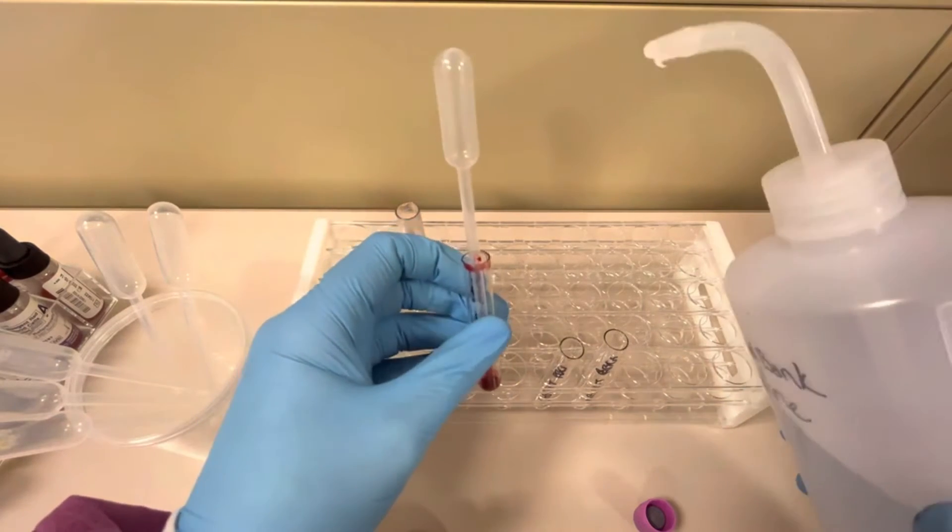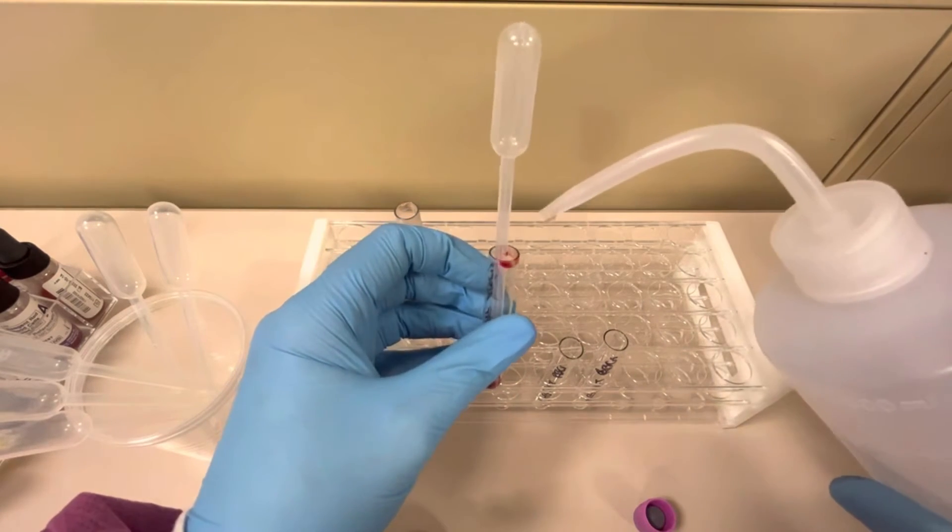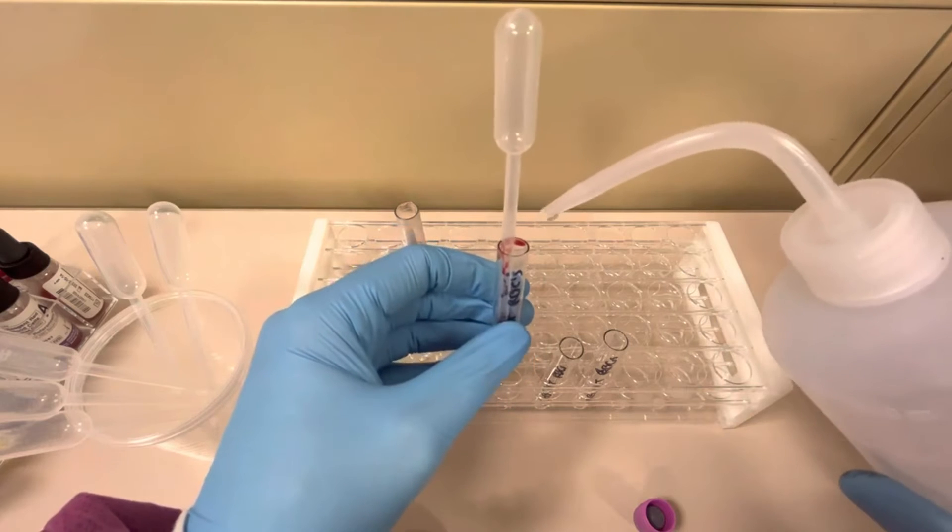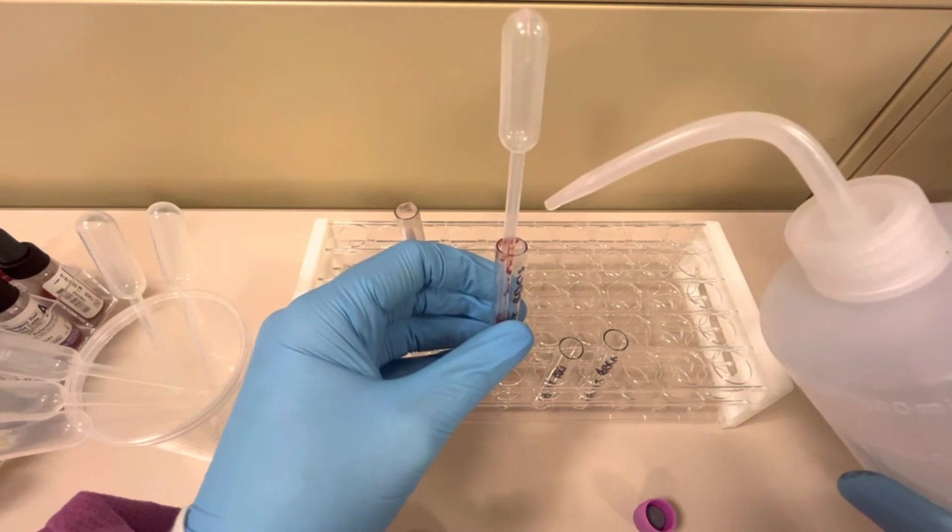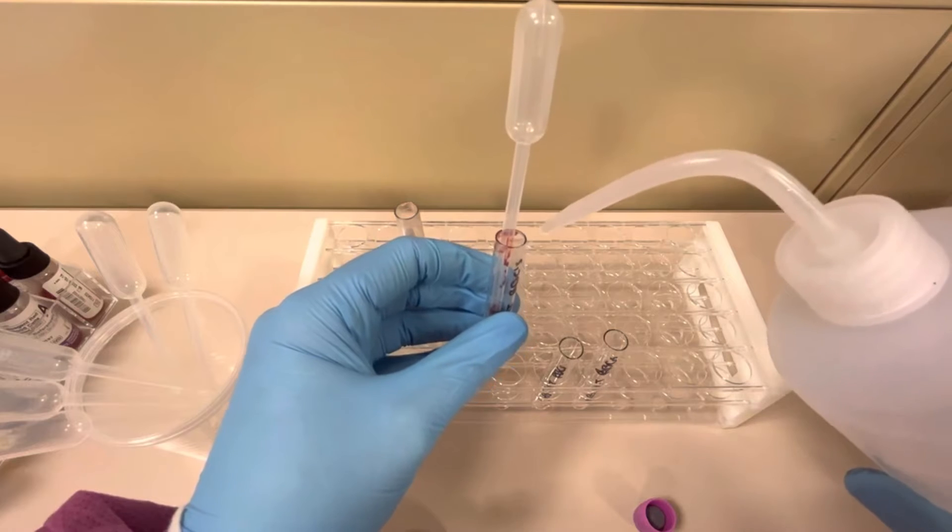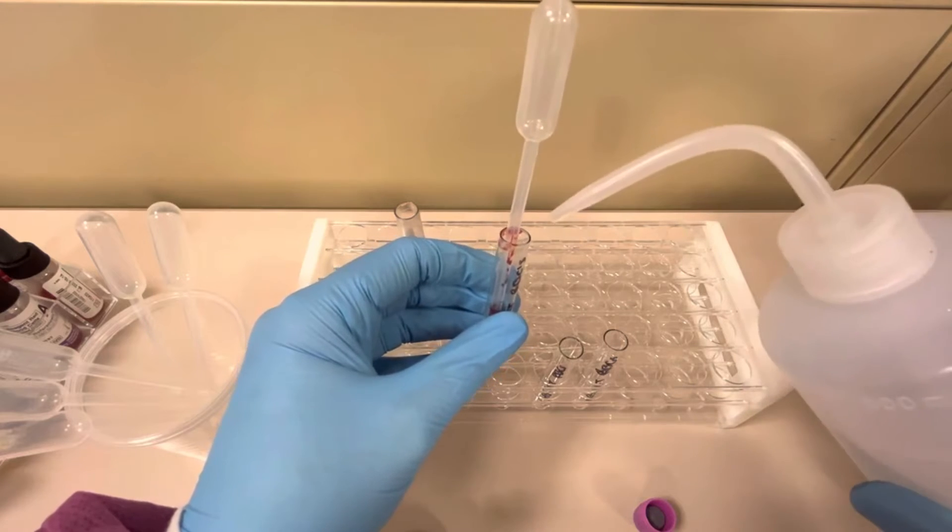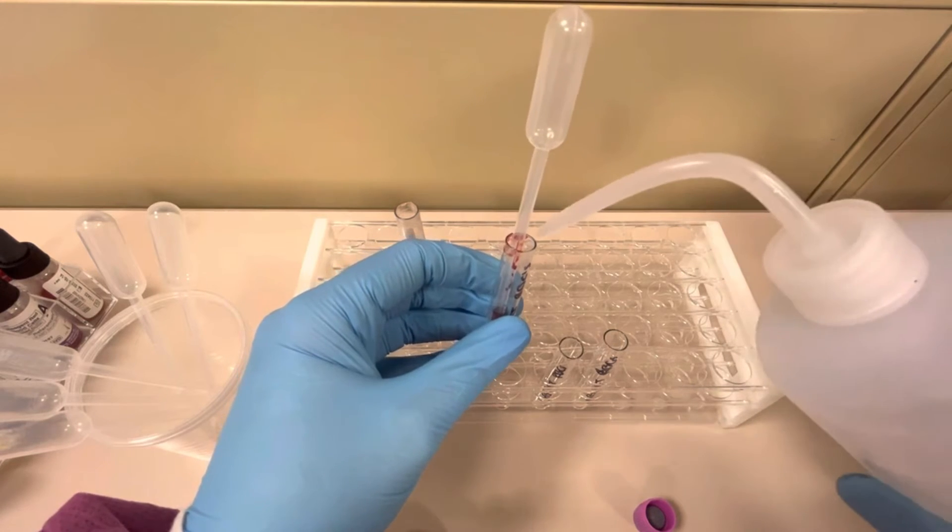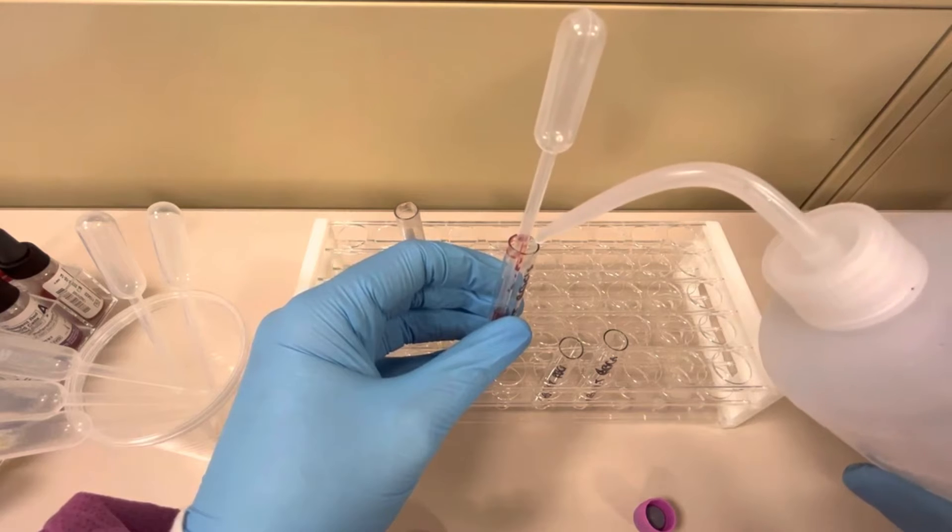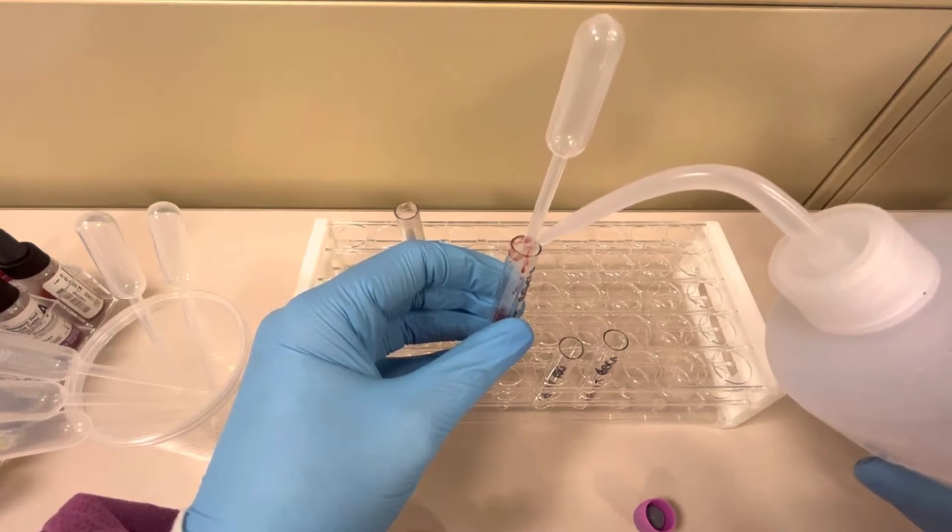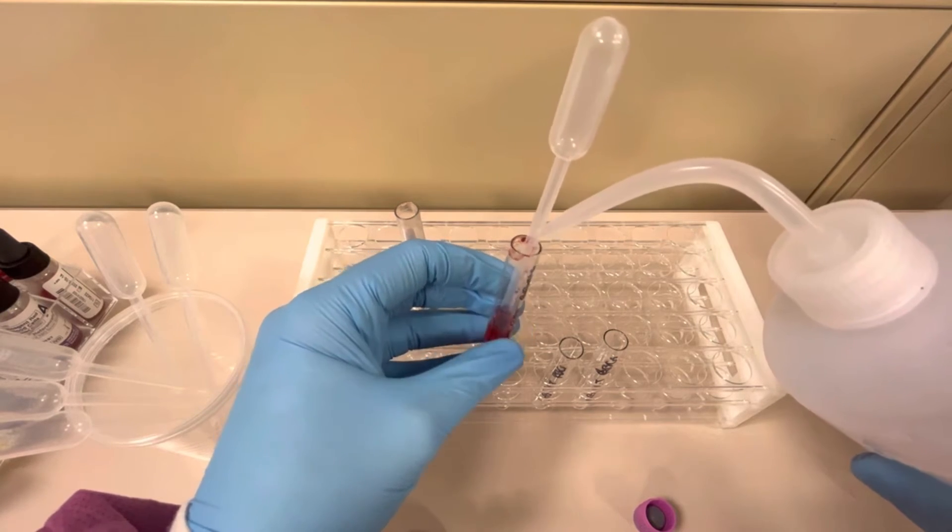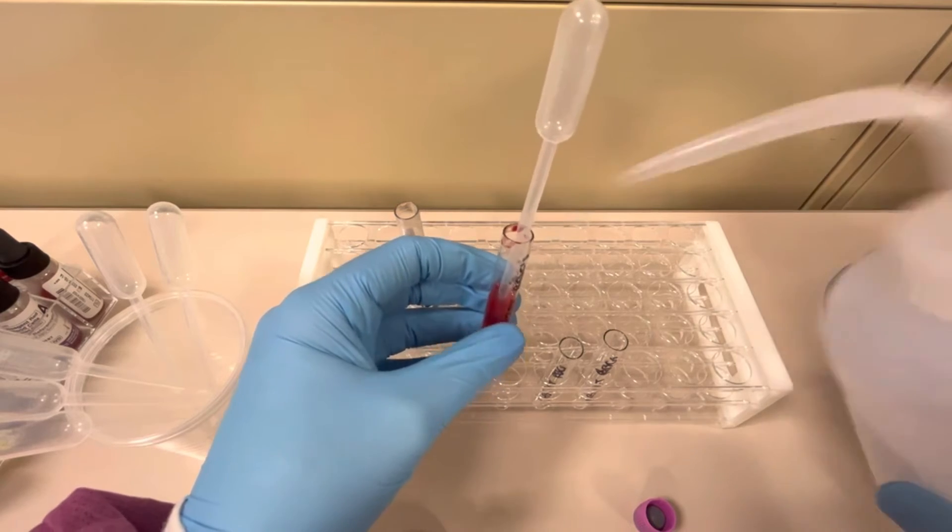The reason for that is water will lyse or break open these red blood cells. So I'm going to take this tip of the blood bank saline bottle and I'm not going to go into the tube because I can contaminate this tip of it, but I'm going to squirt some saline in it.